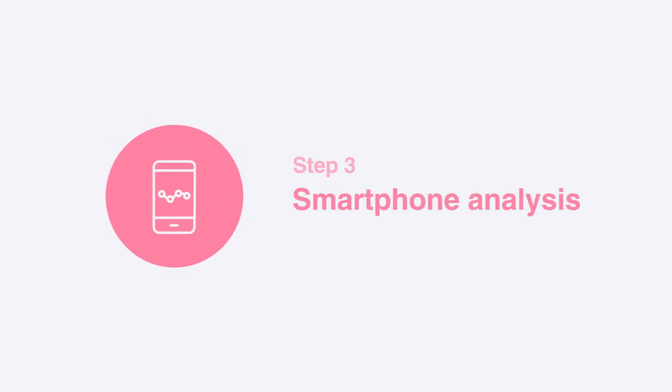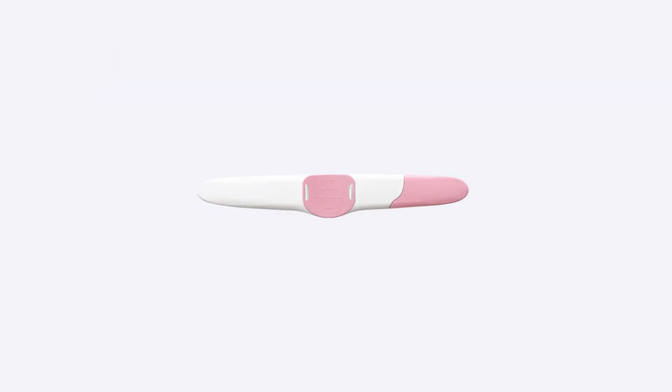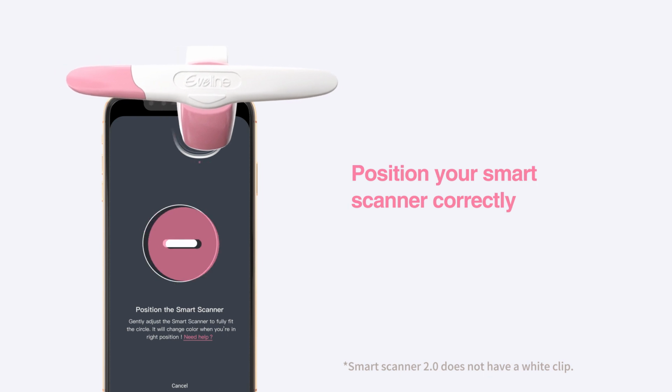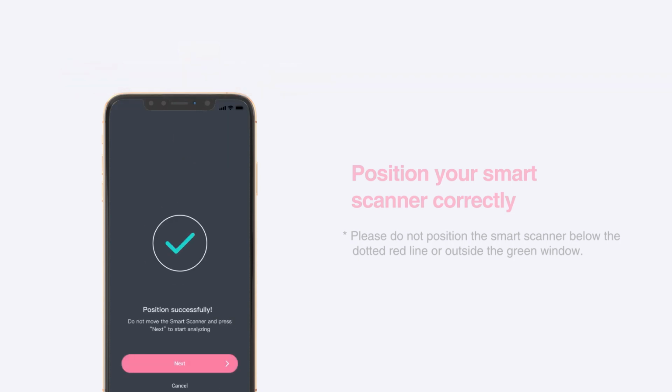Third, let your smartphone analyze your result. Open the Eveline app and press the button to start. Remove the protective cap. Attach the test strip to the smart scanner and position your smart scanner correctly as directed by the app. Please do not position the smart scanner below the dotted red line or outside the green window.